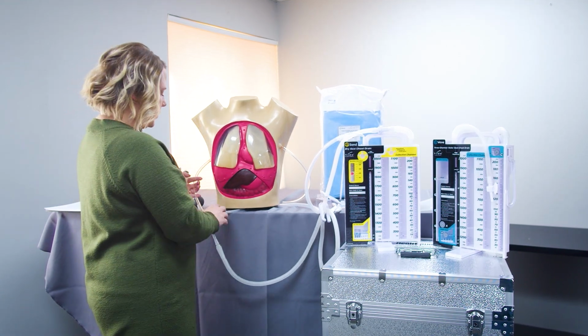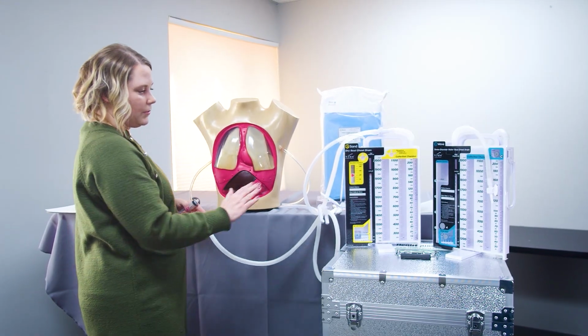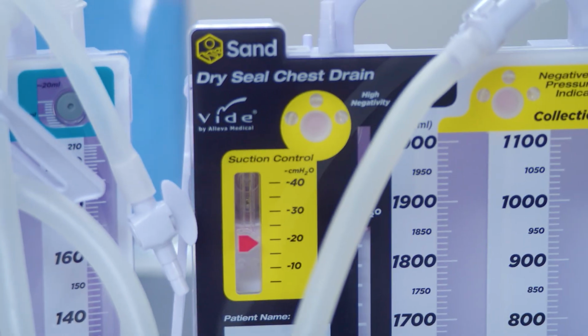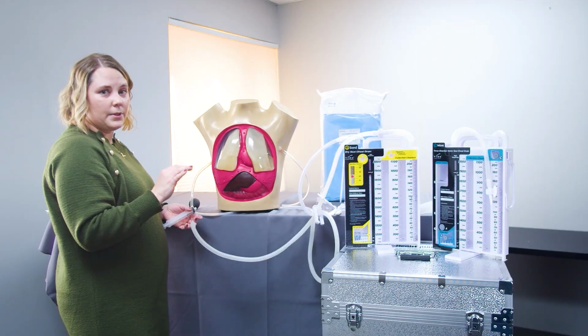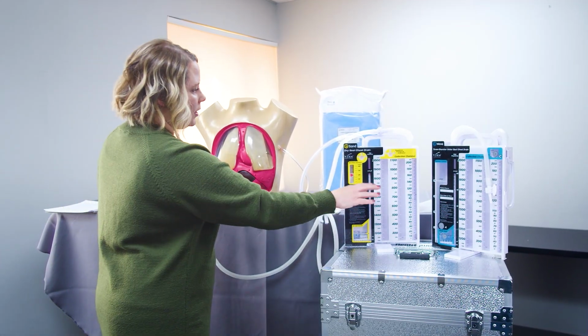And then once you hook up your chest tube to the drainage collection system, that's where all of your drainage will end up, being able to be monitored within the collection chamber itself. So you can demonstrate how important it is to watch those amounts or watch the characteristics of the fluid that's going into your drainage collection system.